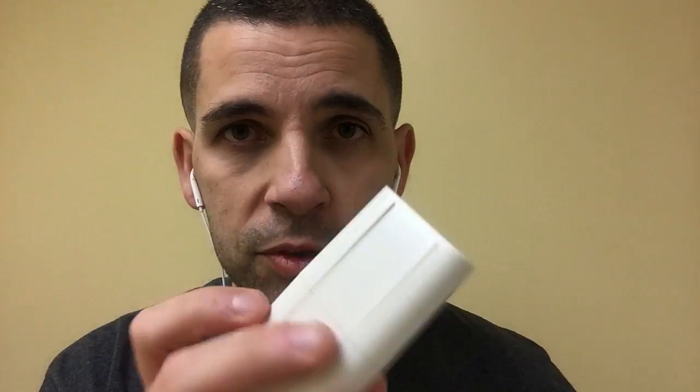Number four is good old floss. I'm sure we're all flossing every patient we do — it's just a different way. Some methods are better in some areas. Floss is not going to feel everything, the hand scaler is not going to feel everything, and so on. Every little thing is going to help you find calculus, especially subgingivally where we're working blindly.